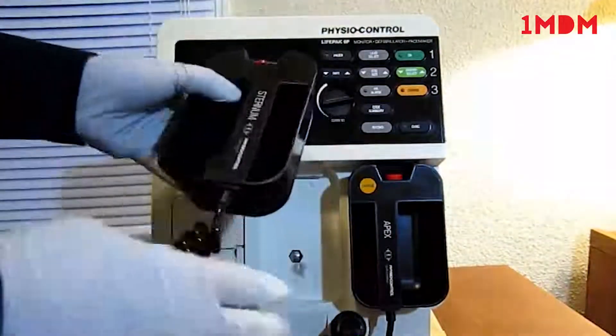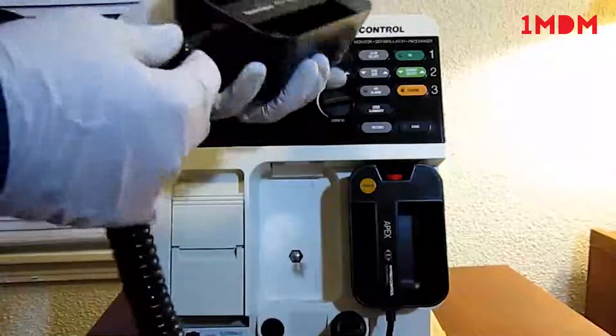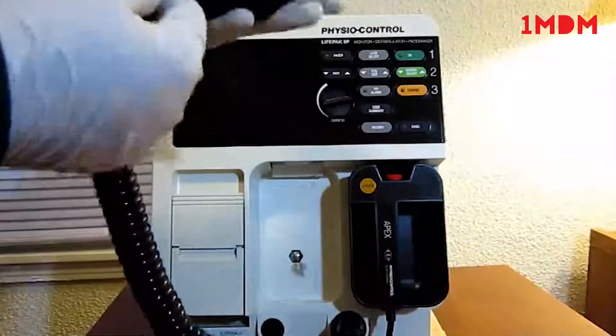The pads are in good shape as well. As you can see, the cables have no cracks and tears anywhere.